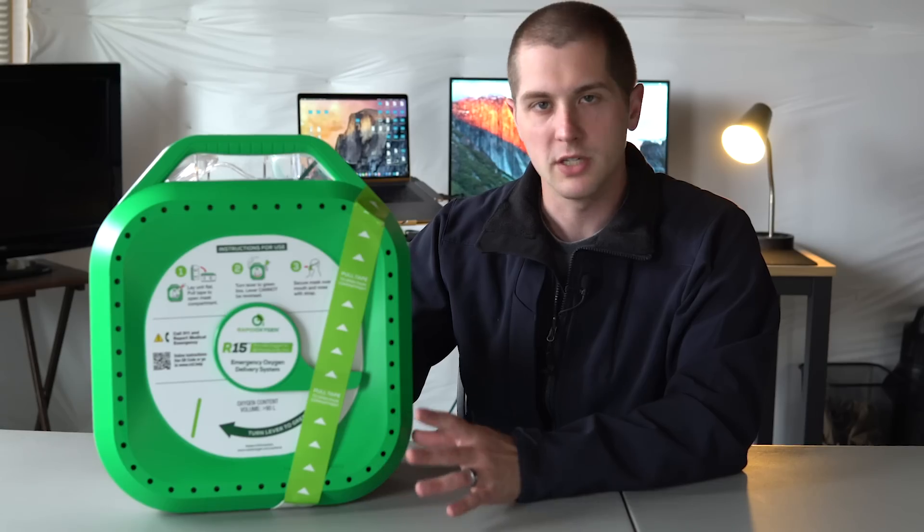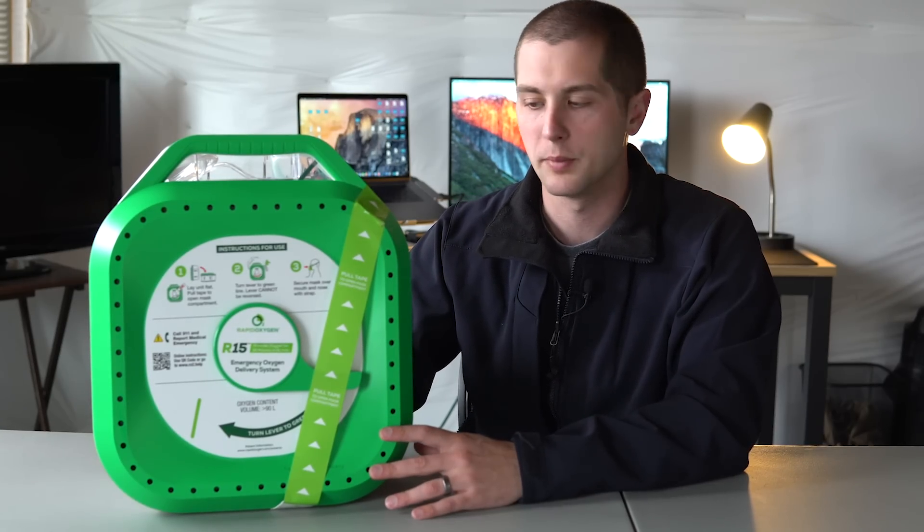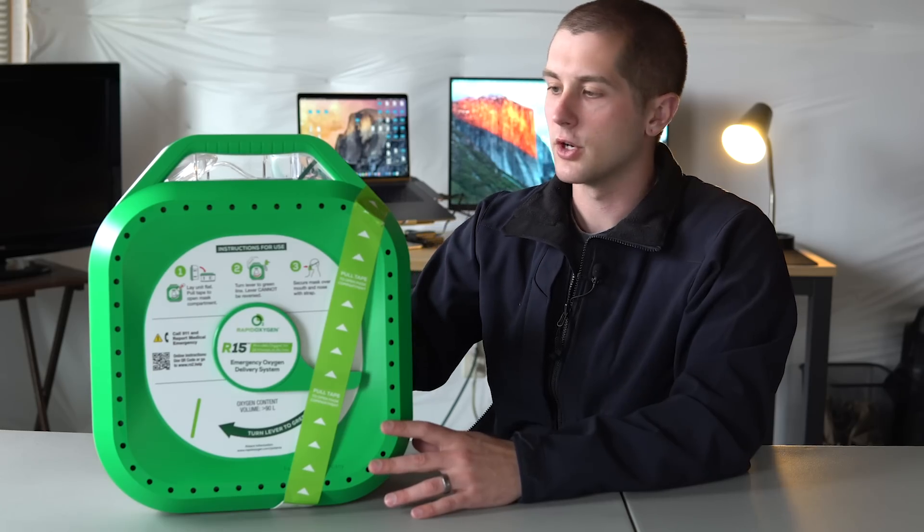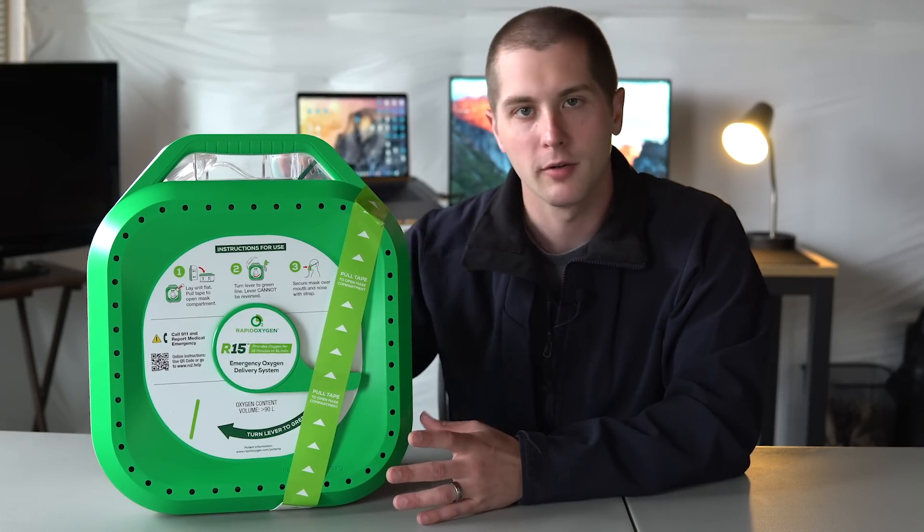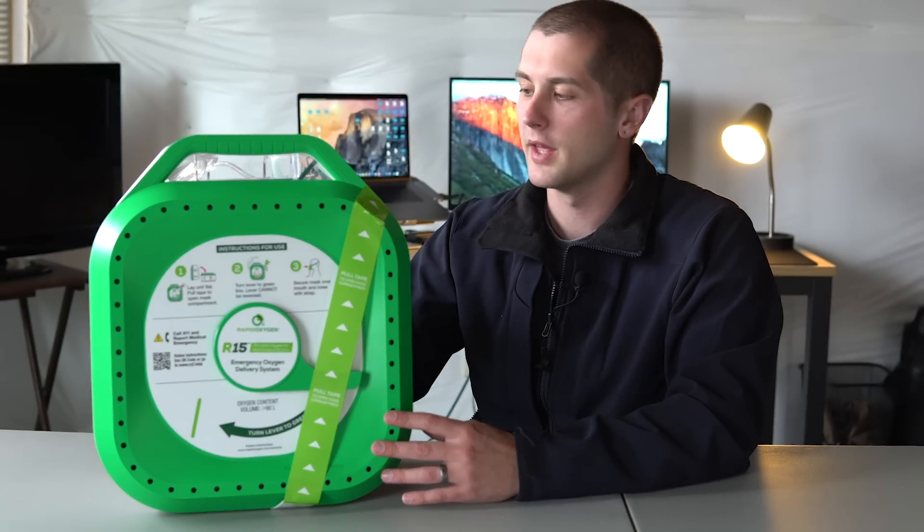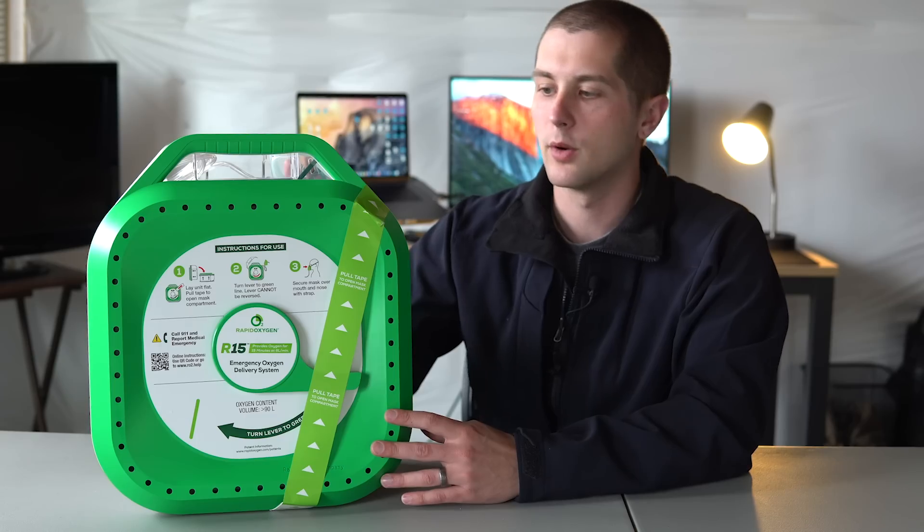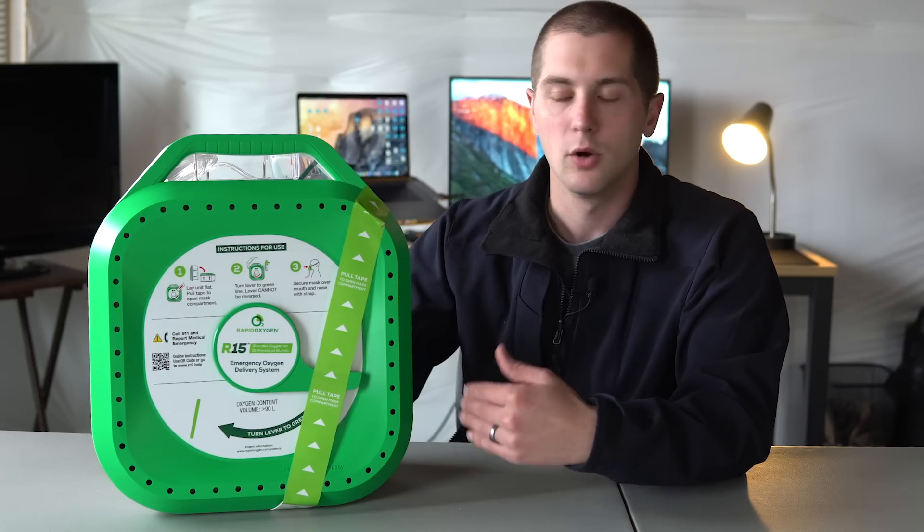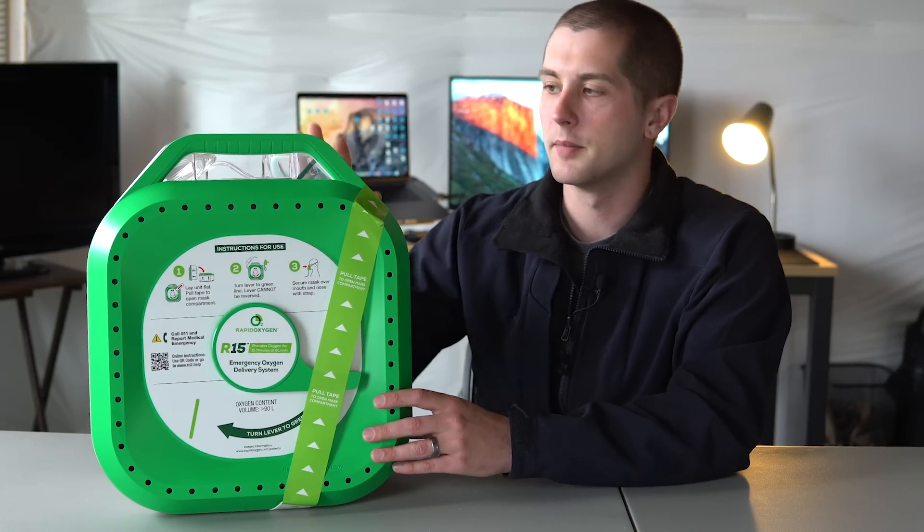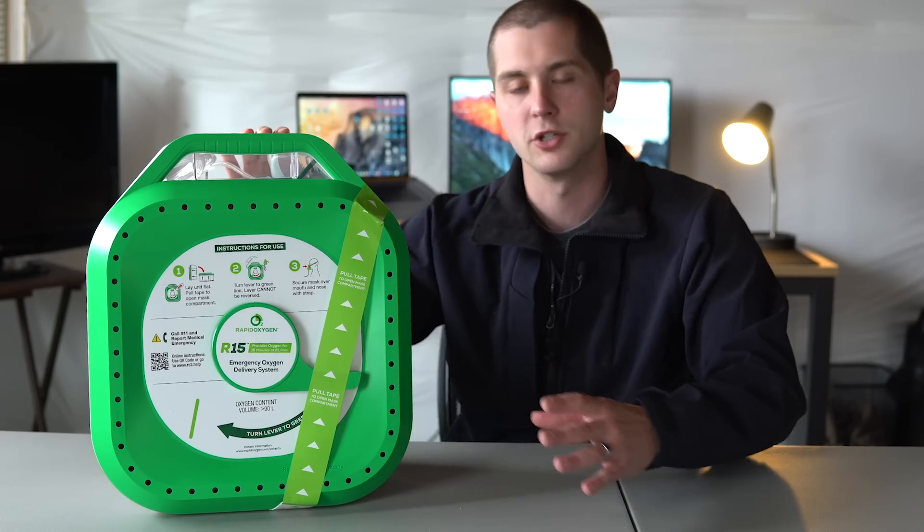All together, this weighs about 16 pounds, which is relatively heavy, although any adult should be able to carry this to a patient. One disadvantage also is that, you know, this shouldn't be your primary in cardiac arrest. You still should be going for that AED and calling for help before you're grabbing this. However, this would be a great thing for an ancillary person to get. So you've started CPR, you've put on the AED, what have you, you've called 911, and then somebody else, if they're thinking of it can grab this and you can apply supplementary oxygen to your patient.